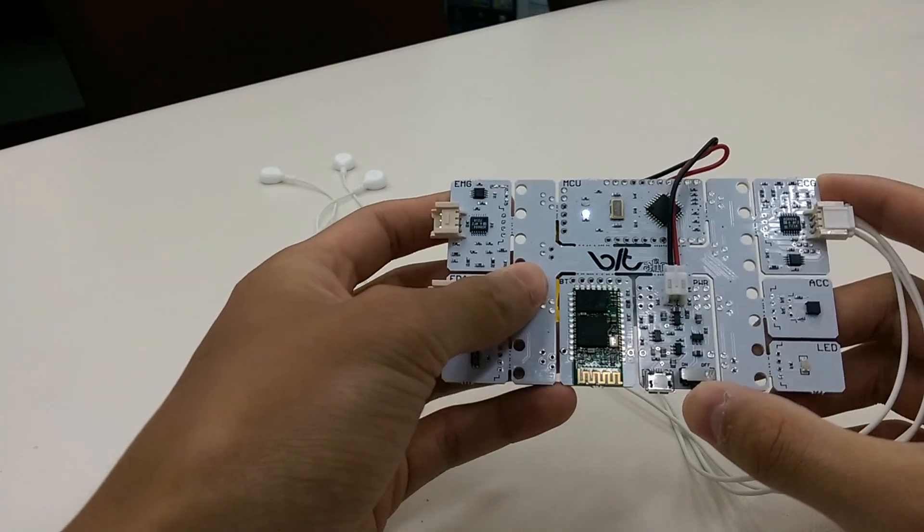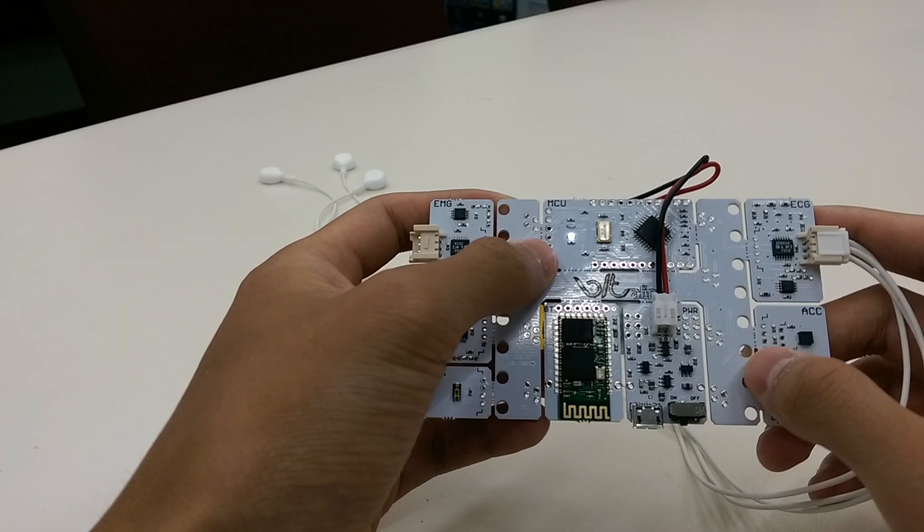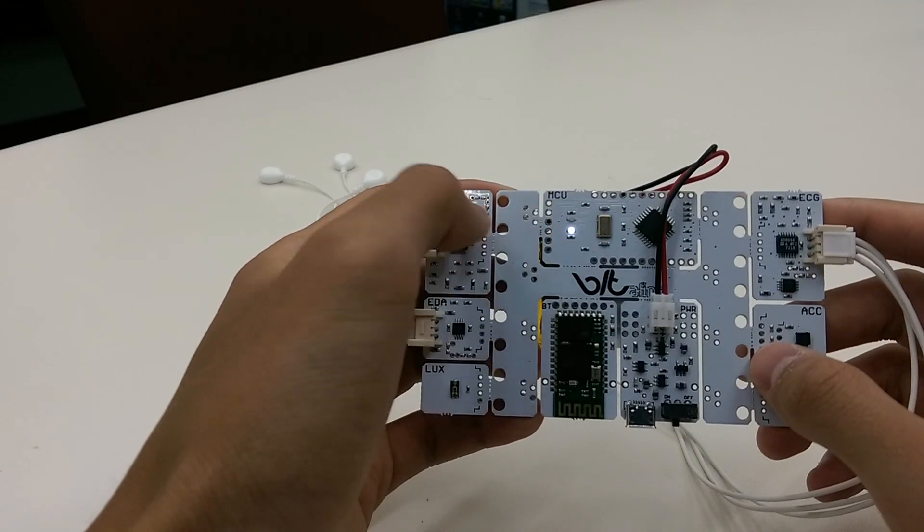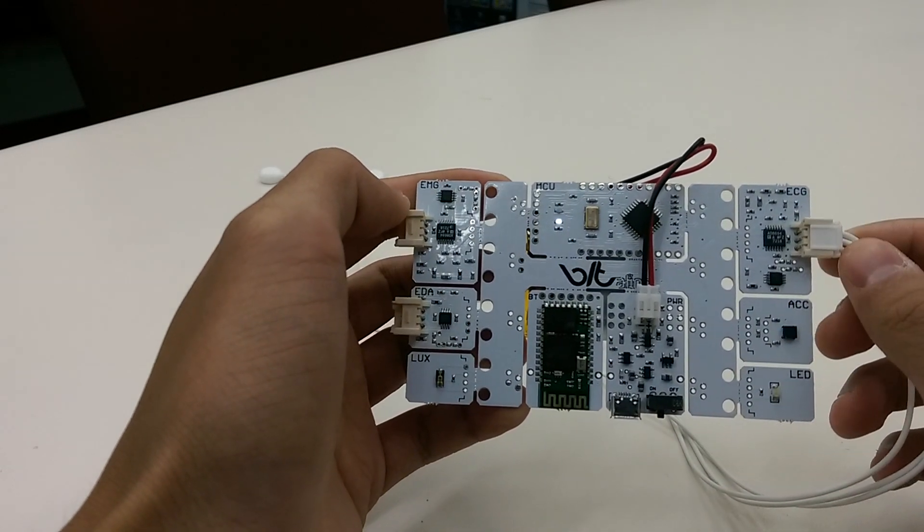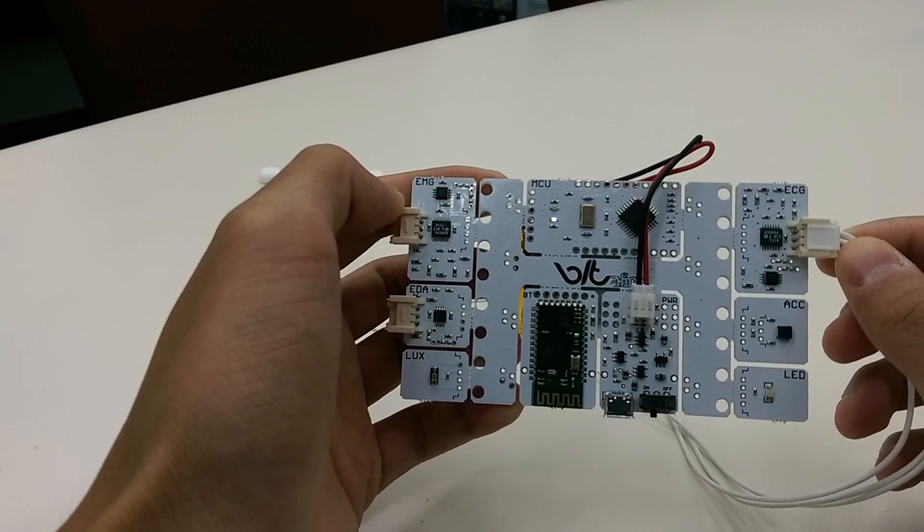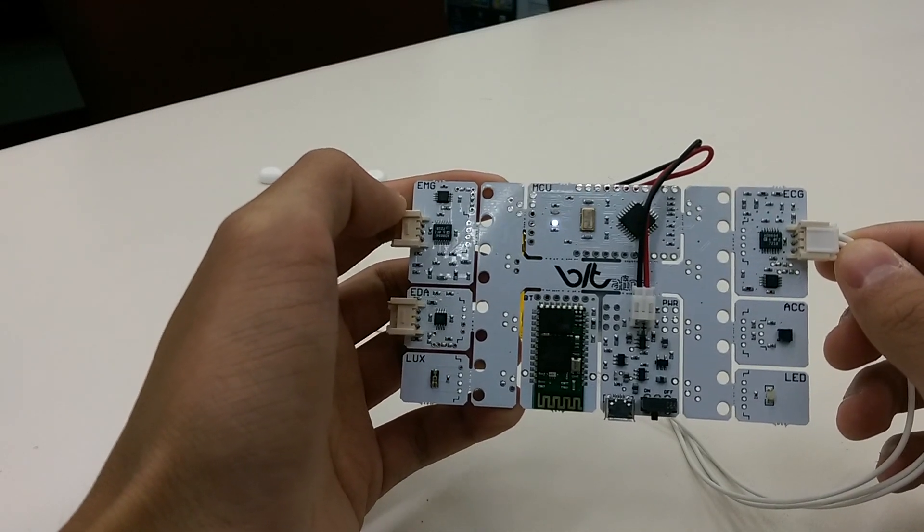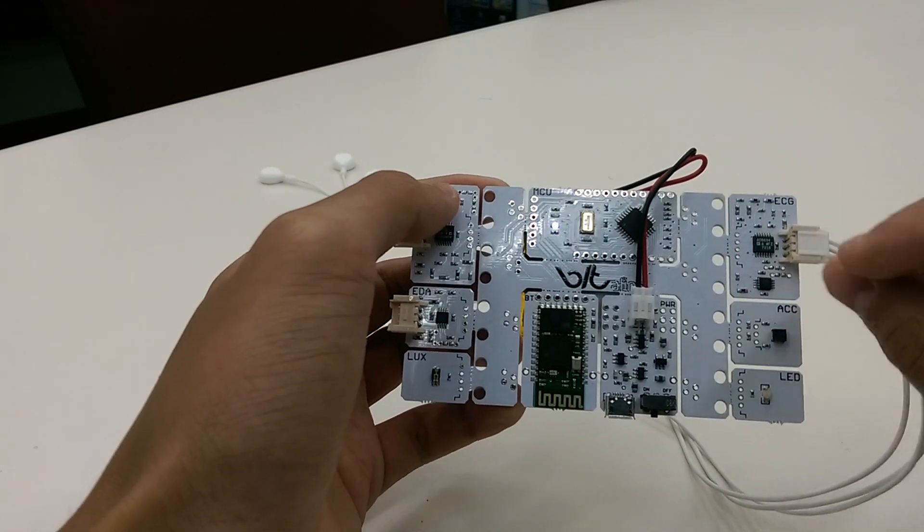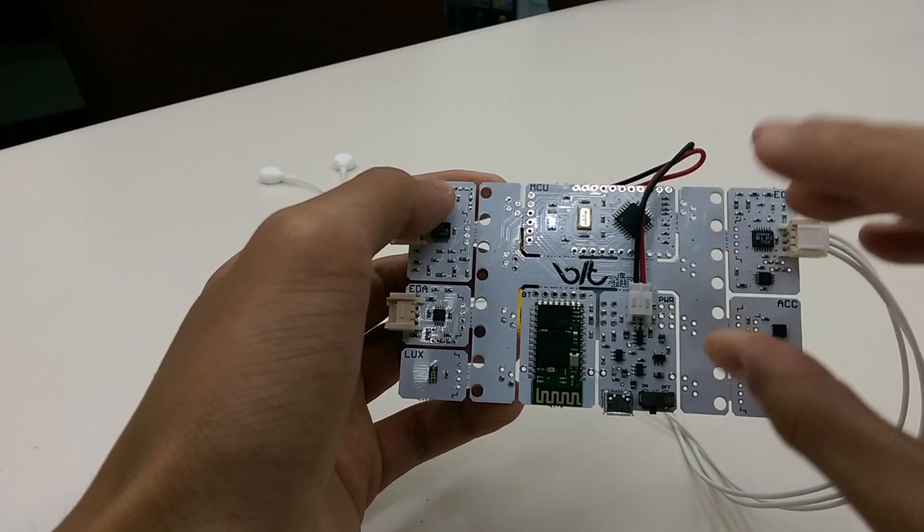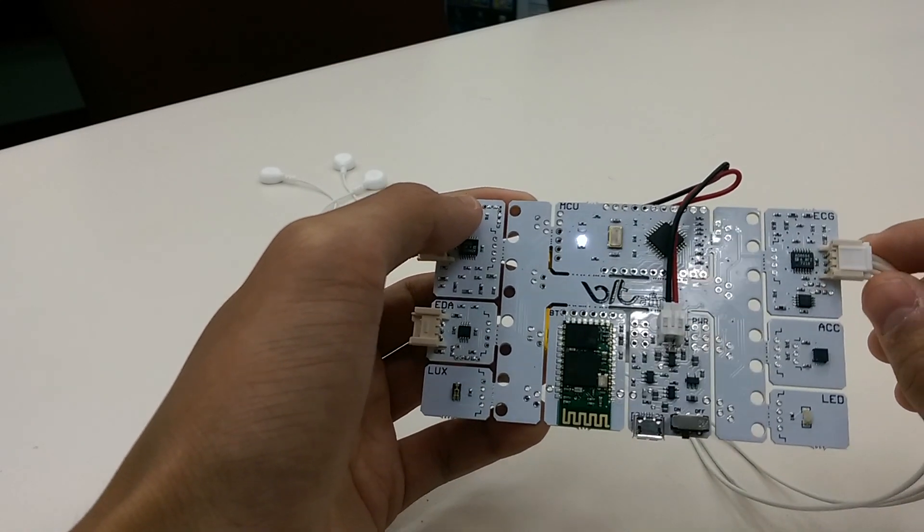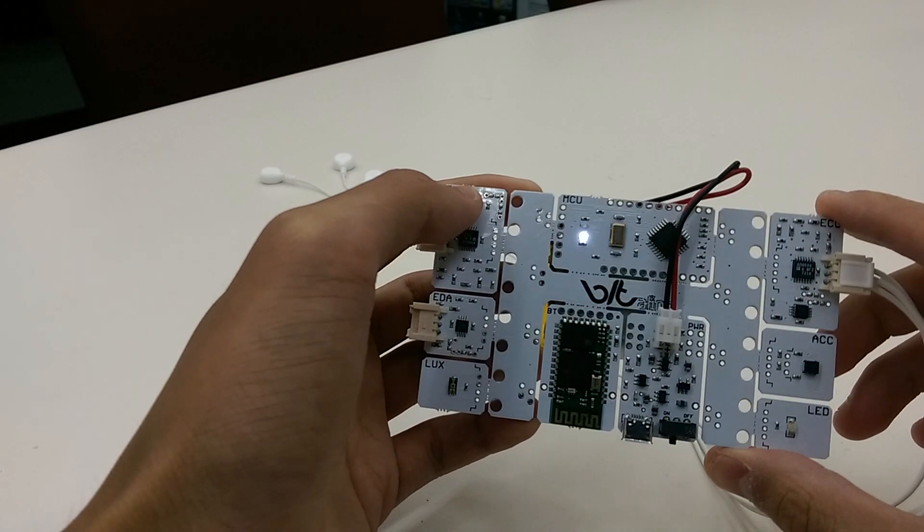Let's turn it on. So when it's on and in standby mode, it will blink right here in white relatively slowly. When it's actually collecting live data, however, it will blink a lot more rapidly. Pretty easy if you're trained to notice the light.